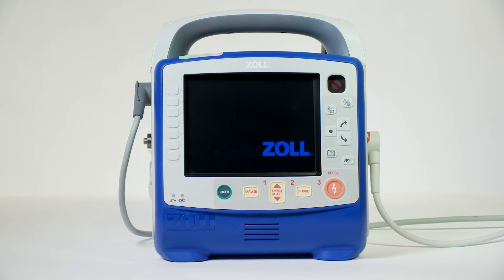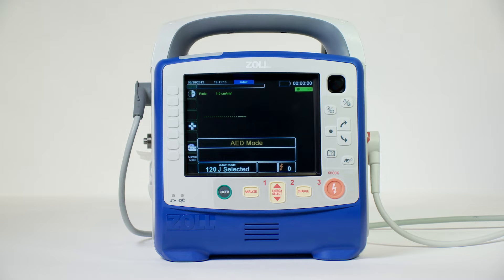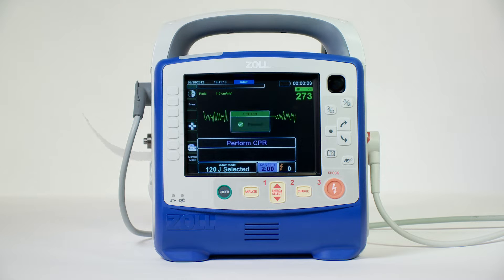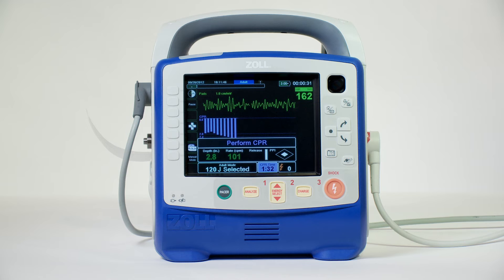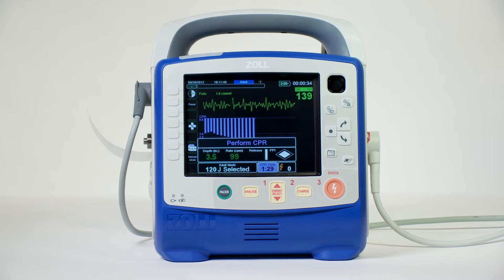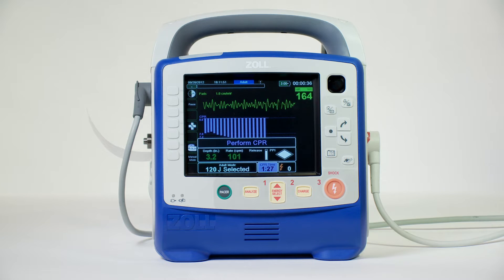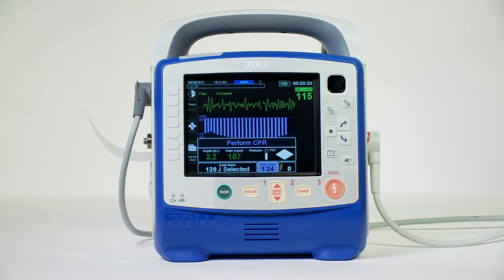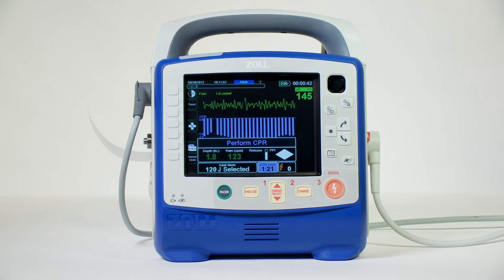In AED mode, a CPR protocol is active on power-up. CPR protocol causes the device to automatically analyze the patient's ECG rhythm using pads. It will also charge the defibrillator when a shock is indicated and provide real-time CPR feedback using audible and visual prompts to help rescuers provide the most effective compressions during a cardiac arrest.